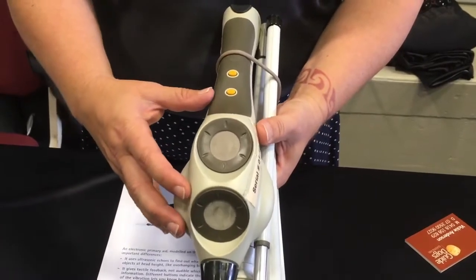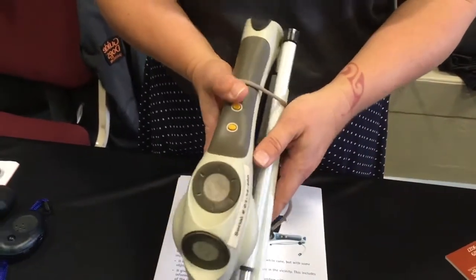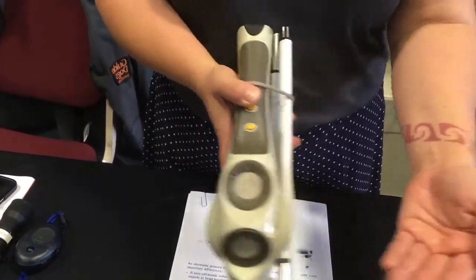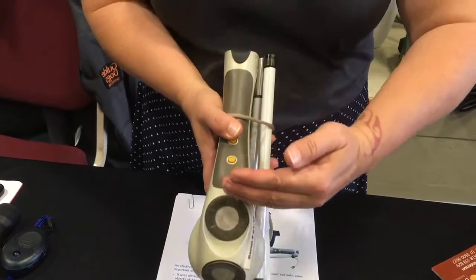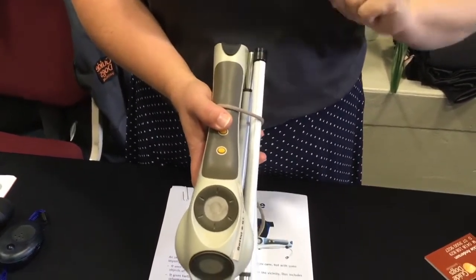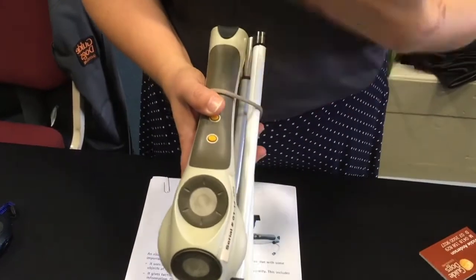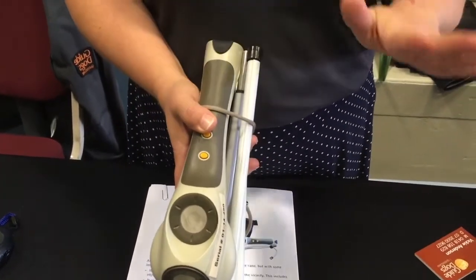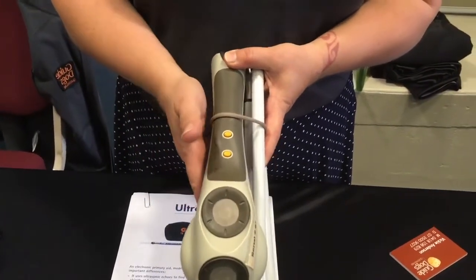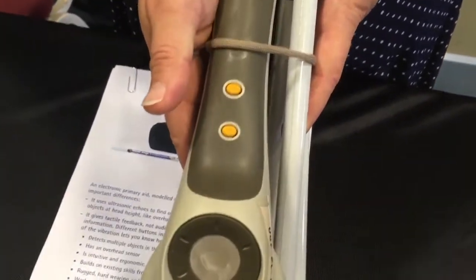The way I look at this cane is kind of three canes in one. As you're moving your long cane on the ground, there's a sensor that comes straight out from your waist going out and scanning the environment, and then there's a sensor that goes straight up — so for tall people especially, any tree branches and things like that. To know if something is coming towards you, there are two buttons above the sensors and you put your thumb on those two buttons.